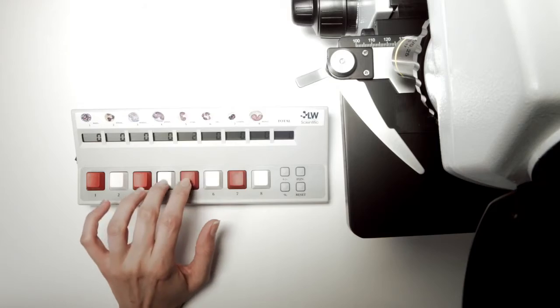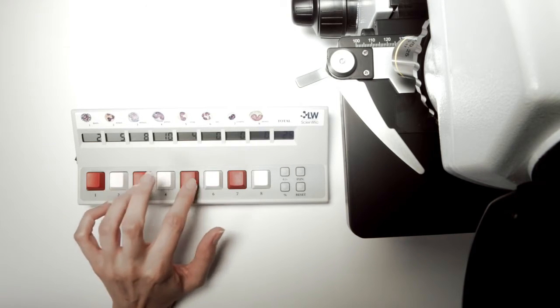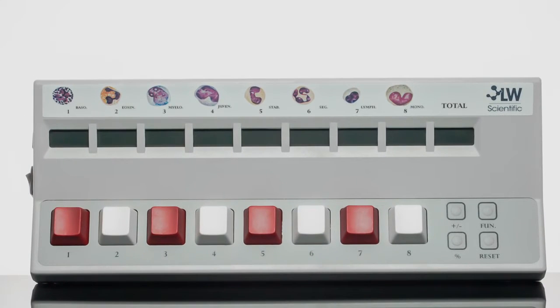Every part of this modern device is designed for no-nonsense ease of use and accurate blood cell counting. The graphically represented cell types support your workflow for quick and accurate recording with every keystroke.